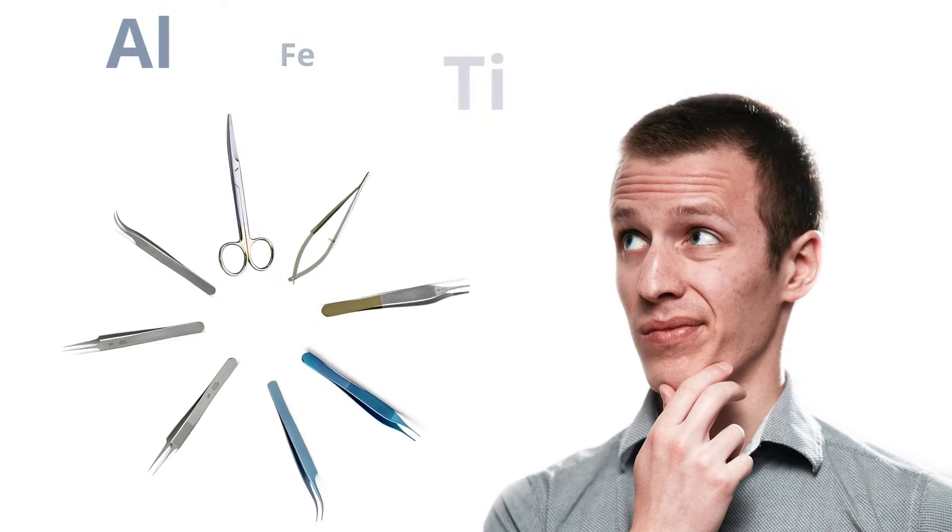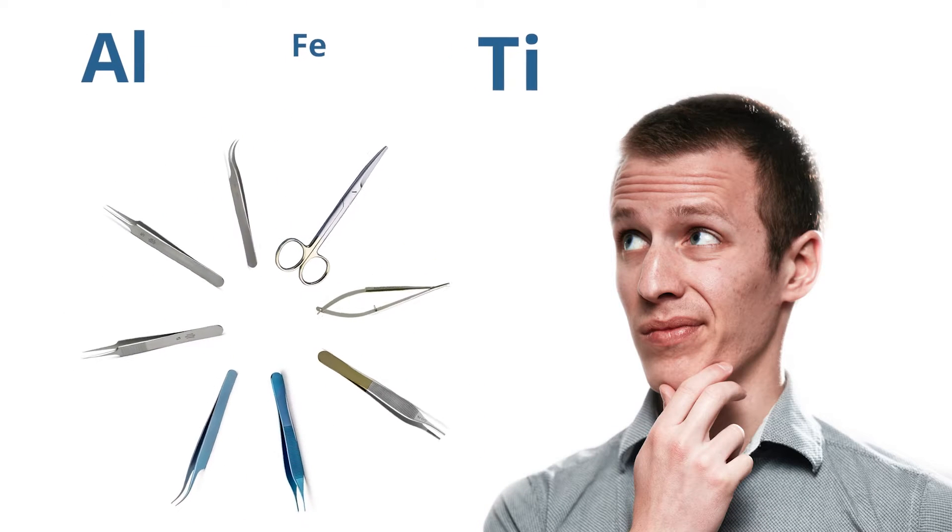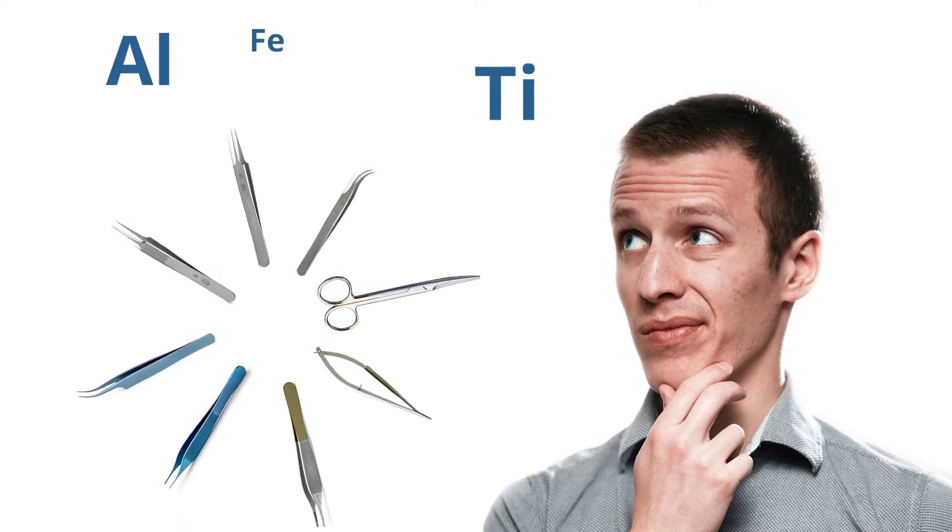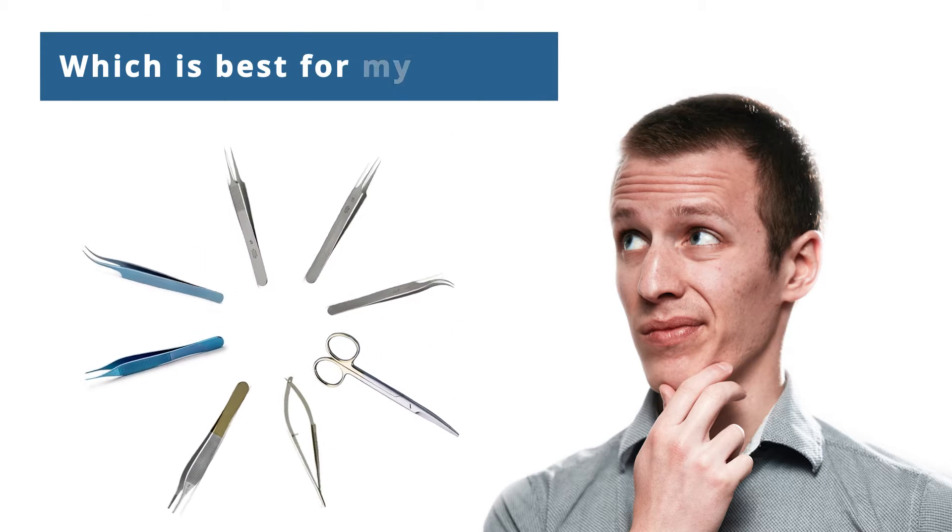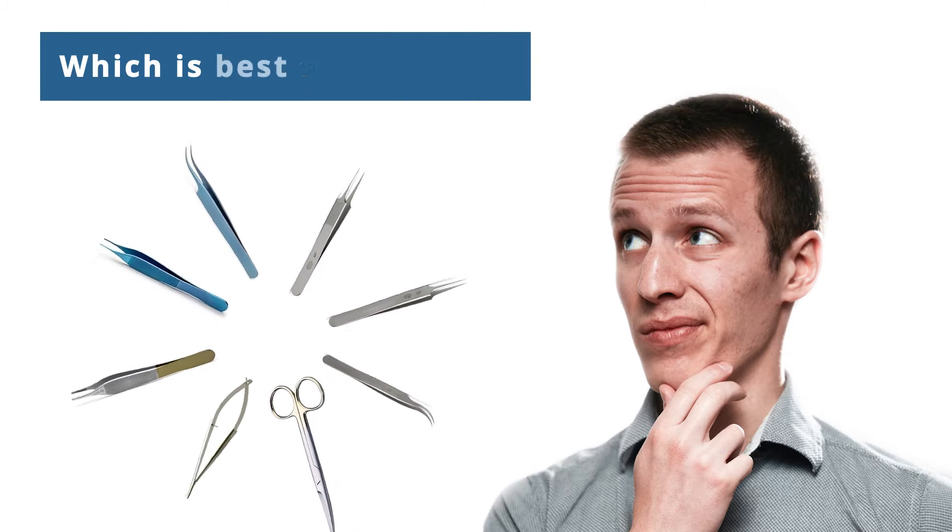Have you ever looked at the variety of metal alloys for surgical instruments and laboratory tools and wondered which is best for your needs? Well here's a brief rundown.